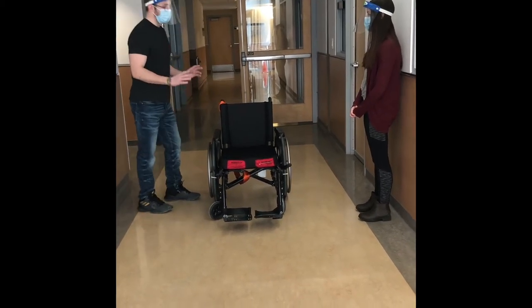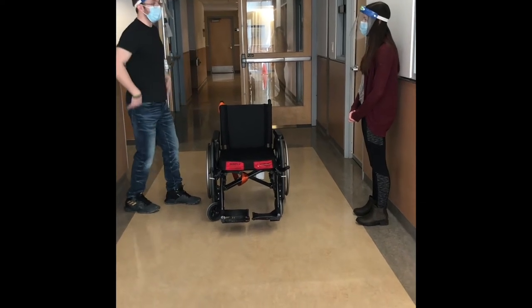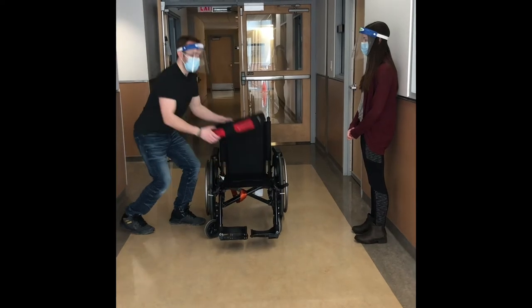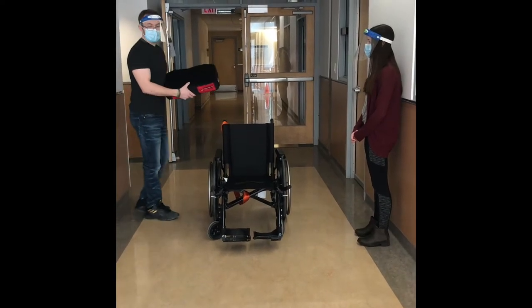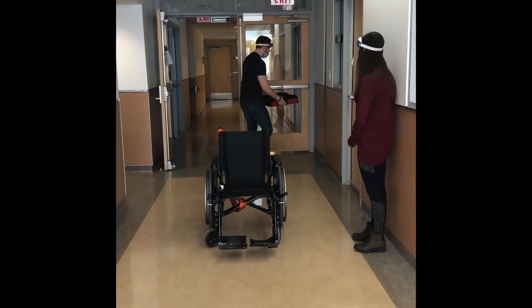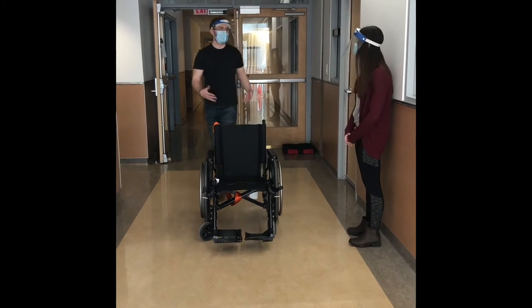To start with this, first and foremost, we're going to watch our body mechanics. At all times, I want to bend with my knees, not with my back. So we're going to start off by getting rid of the seat. We'll keep this and put it in a safe space — normally on a table, but we'll put it over here so we're not going to trip on it. That's mainly what we want to avoid.